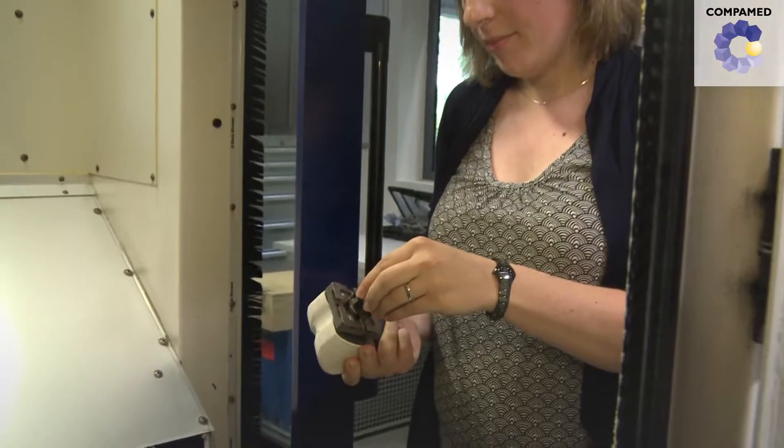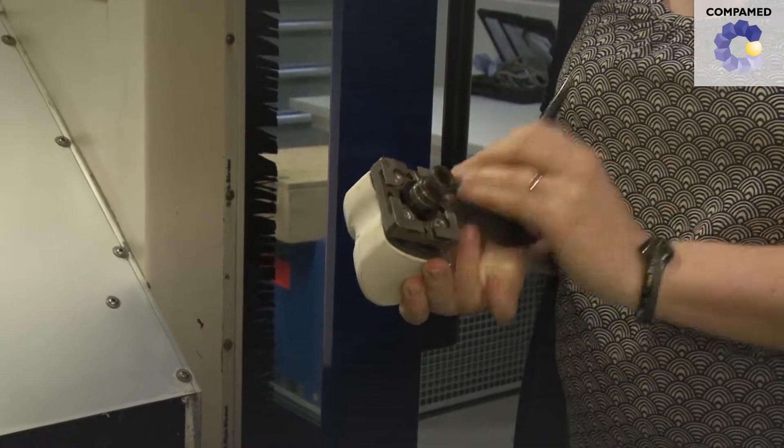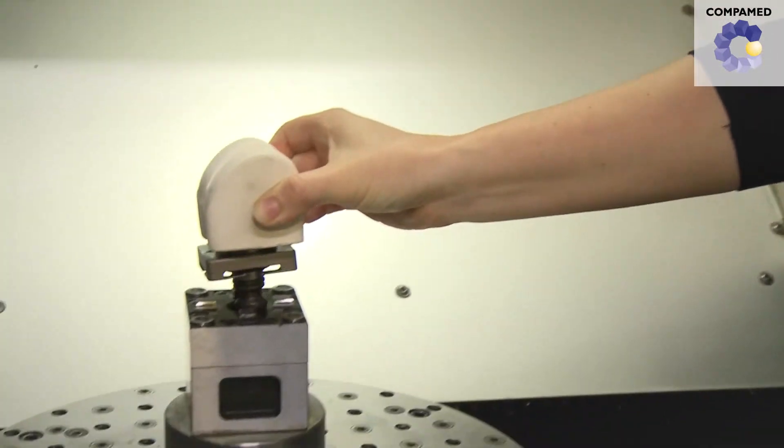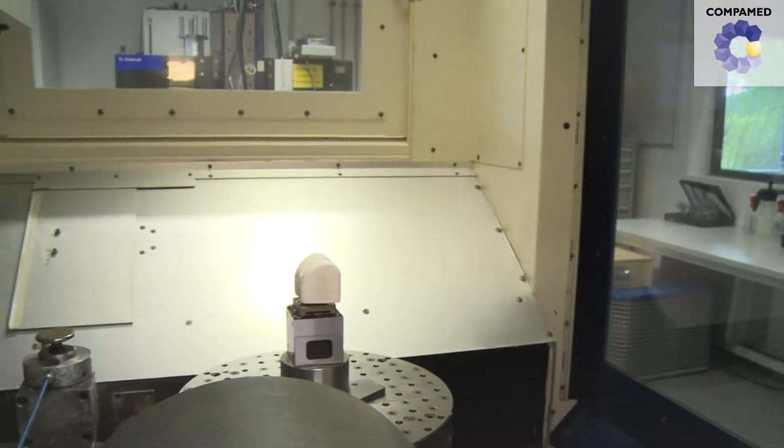This makes components far more complex and distinctive, and this also needs to be reproducible by a machine. The IFW currently researches a manufacturing process that is meant to reproduce the complex form of the knee joint as well as possible. Surface finishing is particularly important for this.